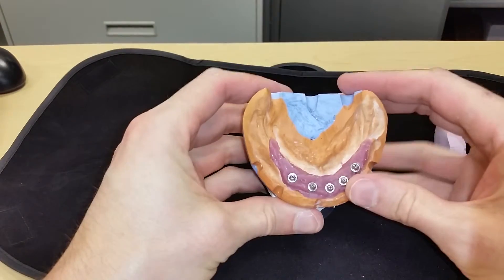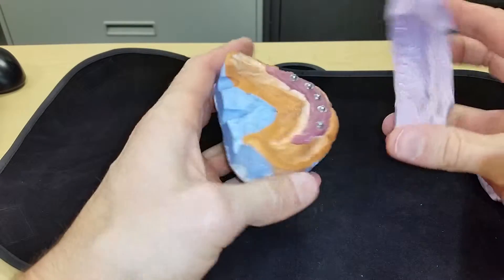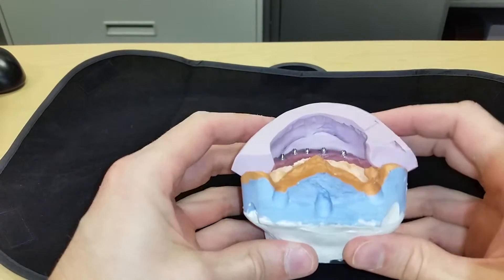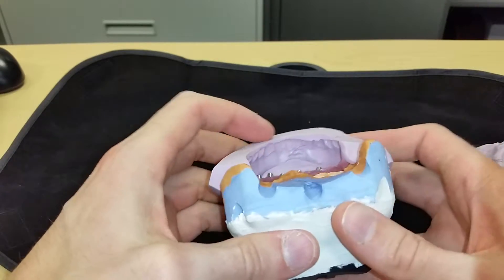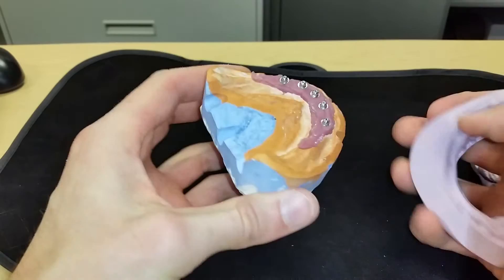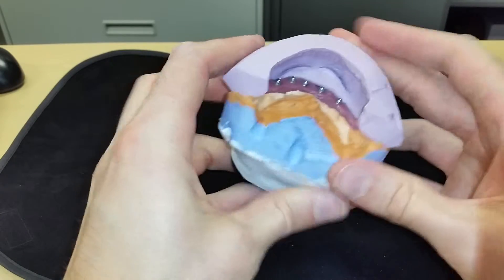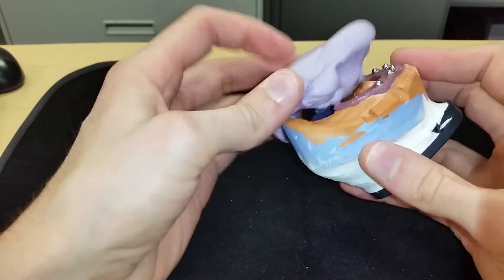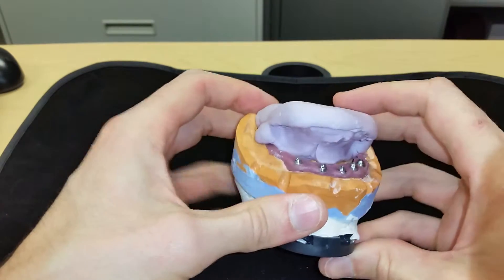You need your patient's provisional hybrid restoration to do this. Envision that restoration is screwed on the cast, and then you're going to make a silicone matrix of that restoration. You can see exactly what I'm talking about here — you've got incisal edges all envisioned and connected. The way to do this without having your silicone matrix wobble is to index it: I cut notches onto the cast so the matrix snaps right back into place. You want to do this for both the facial and the lingual, because that provides a lot of good information for your lab ceramists about tooth position when making your titanium frameworks.